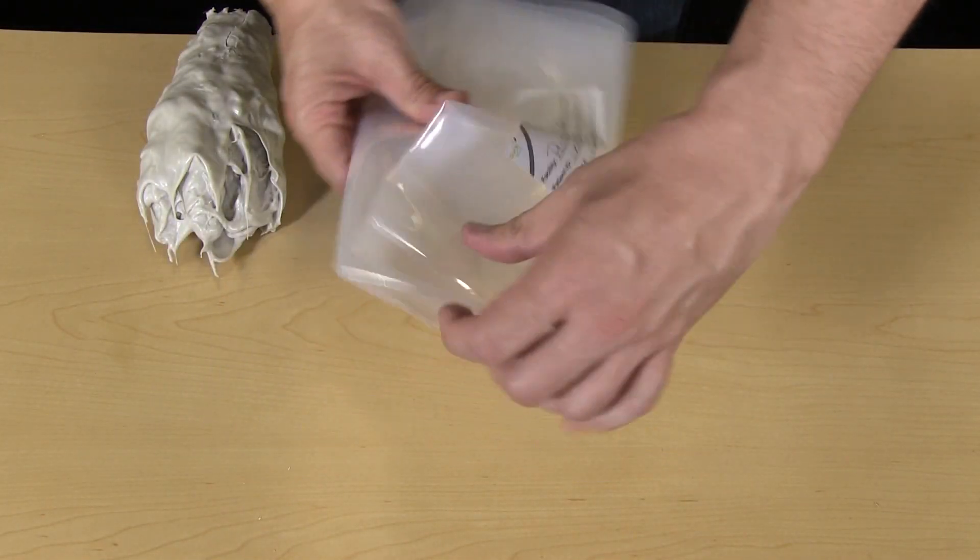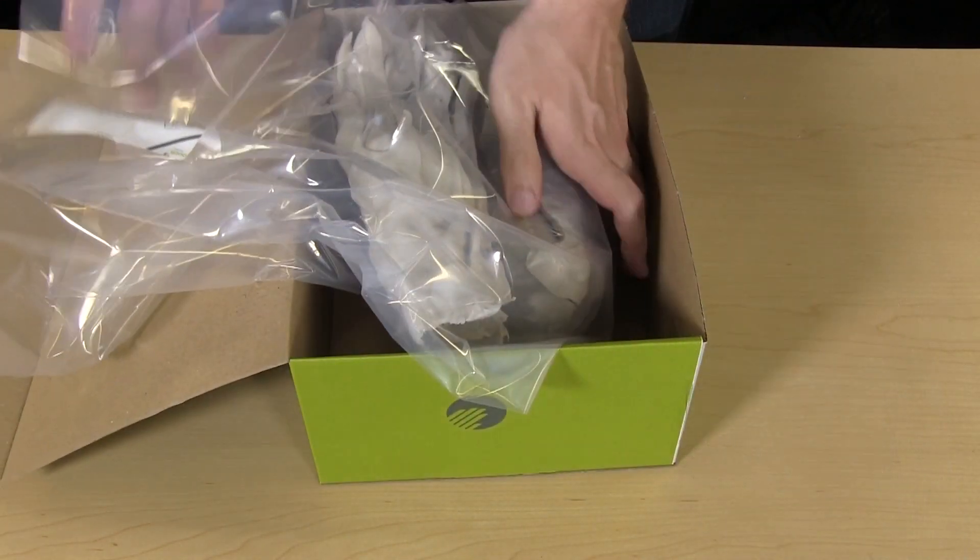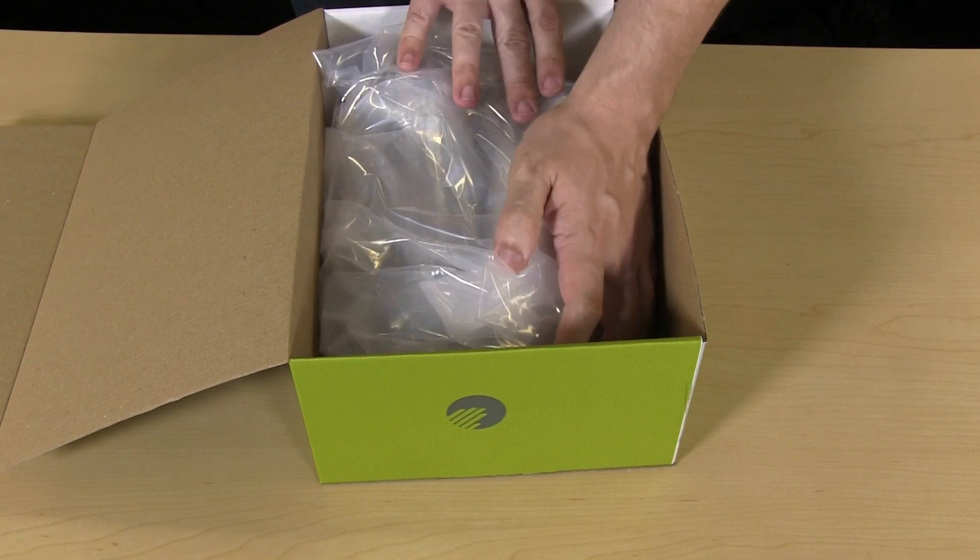Place the impressions in the enclosed shipping bag. Now place the bag with impressions and the container opener in the shipping box and return to Touch Bionics.